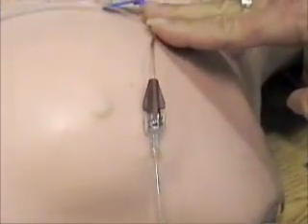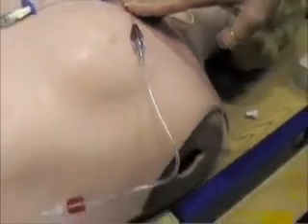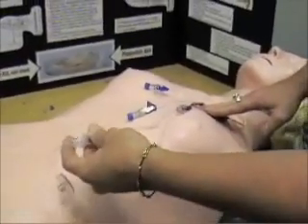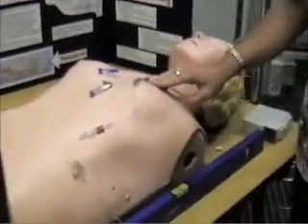That's a direct connection. We found that different types of hubs sometimes cause problems, sometimes they don't. So we found it better to direct connect it.